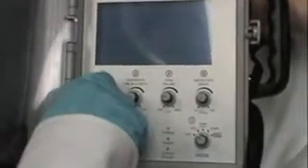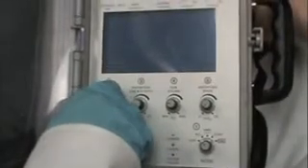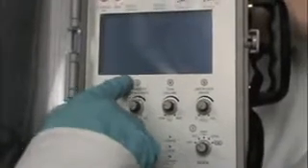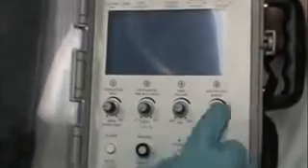We're going to set a ventilation rate. I'll say the rate's going to be 16. So now we have a rate of 16. We're going to set a standard I time. So the I to E ratio and a rate of 16 is 1.3 seconds is your I time. We're going to set a tidal volume of 6 cc's per kilogram. And for the sake of discussion, we're just going to assume that works out to be about 500 cc's. And then we're going to select an FiO2.